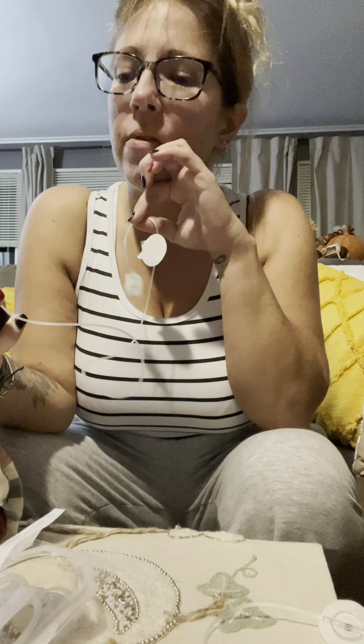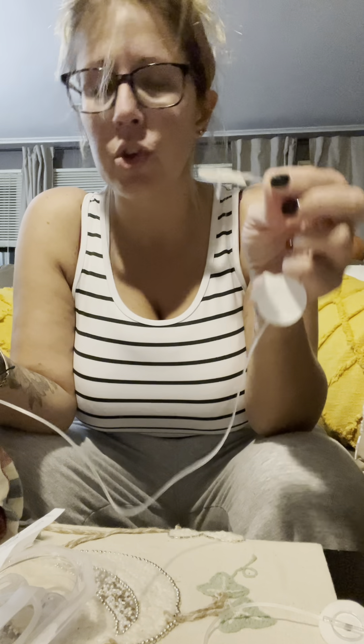So to fill just this section of tube — because mine's already filled, the rest of it's already full — I'm going to do a bolus. I'm going to do a manual bolus of five units. I think you could get away with three, but I always like to do five, just so I know that there's no air in the lines and it's working. So deliver bolus.